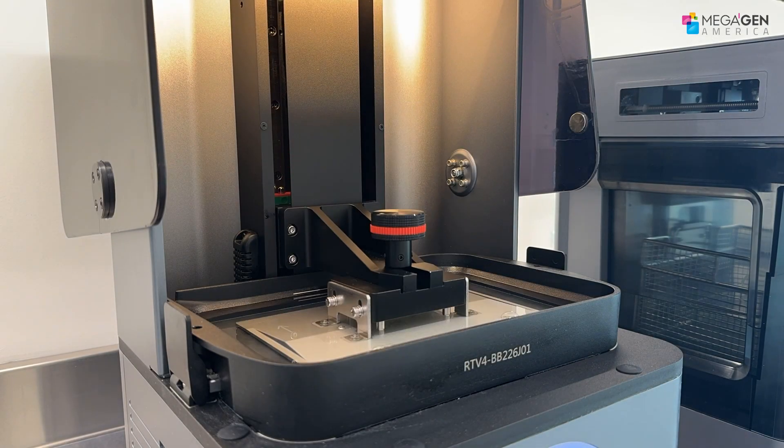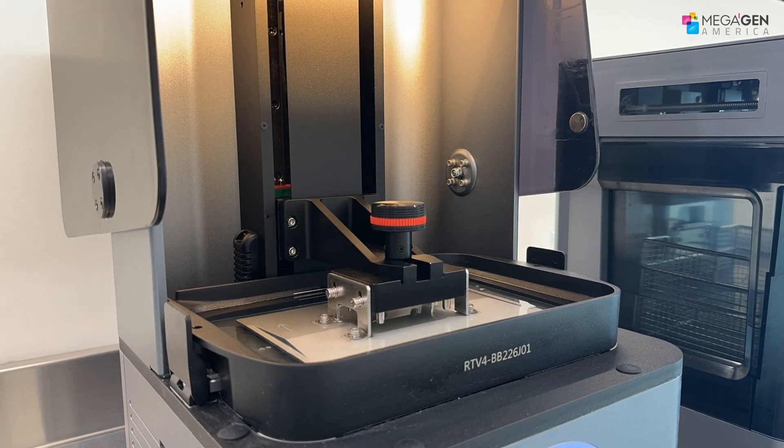At this point, we can wait until the guide is printed and you can check the progress from the software.